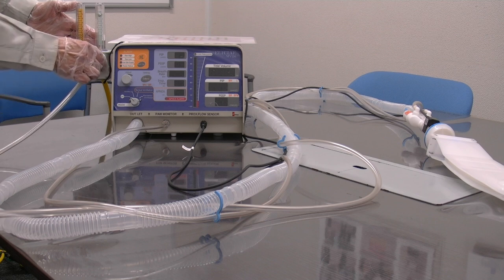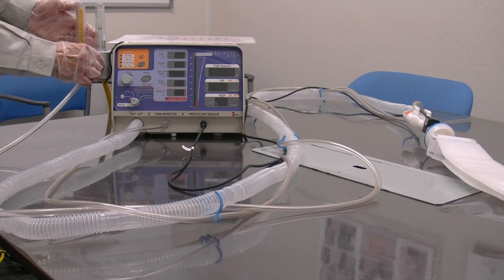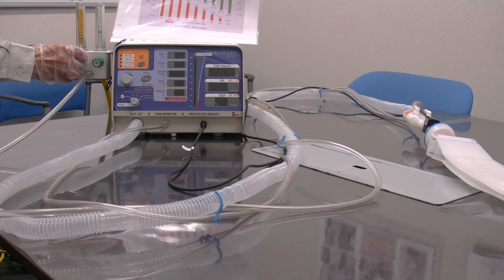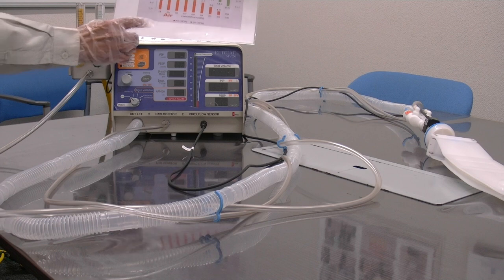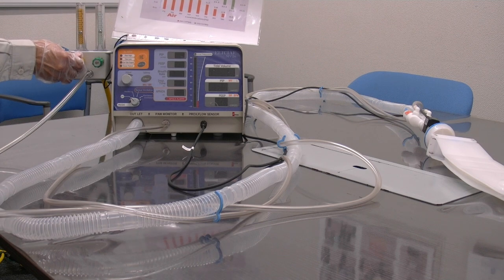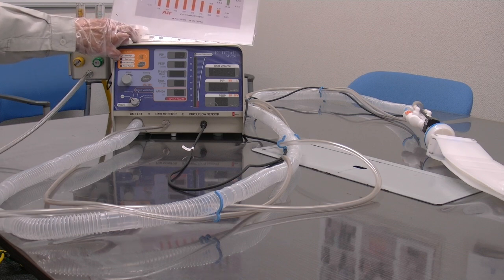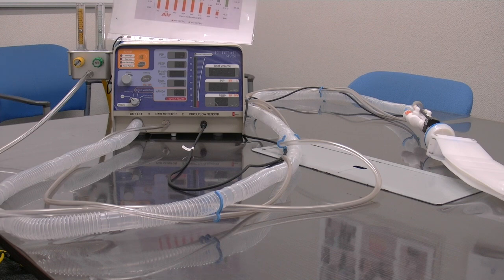If you wish to set a lower FiO2, then please set the O2 and the air valves as needed. If they're both at around 7.5 litres per minute, you'll get an FiO2 of around 60%. There's a table on page 48 of the user manual which shows the FiO2 settings, and we recommend keeping a copy of the table attached to the ventilator.